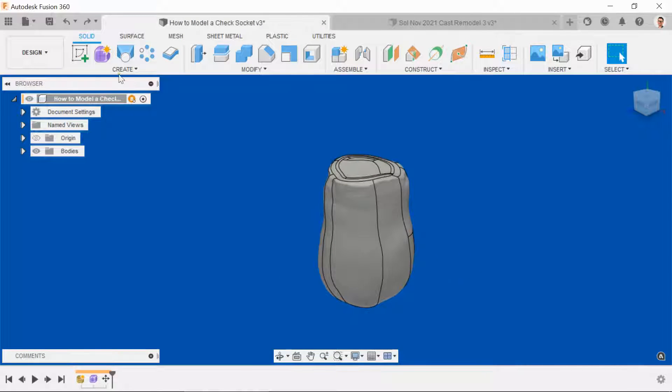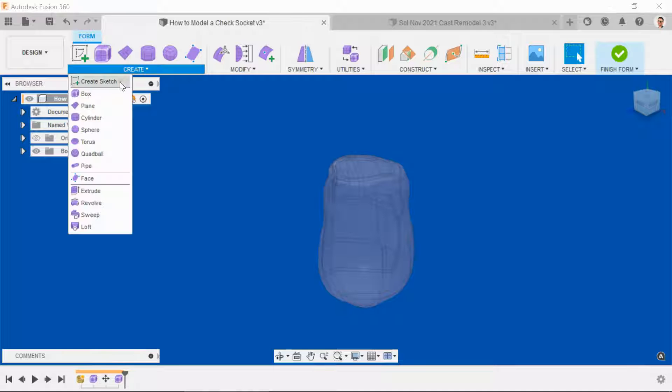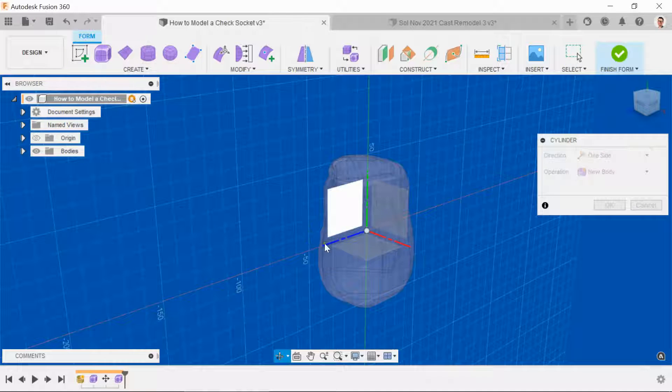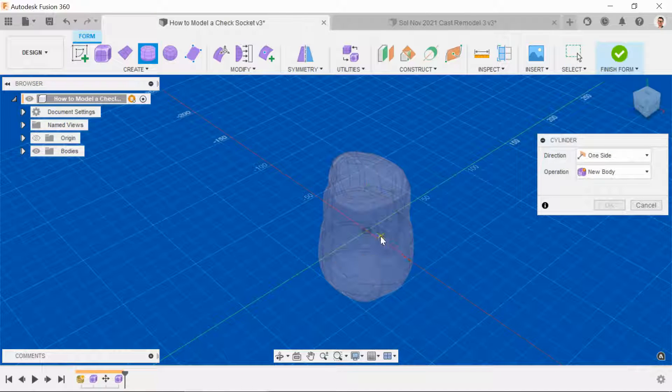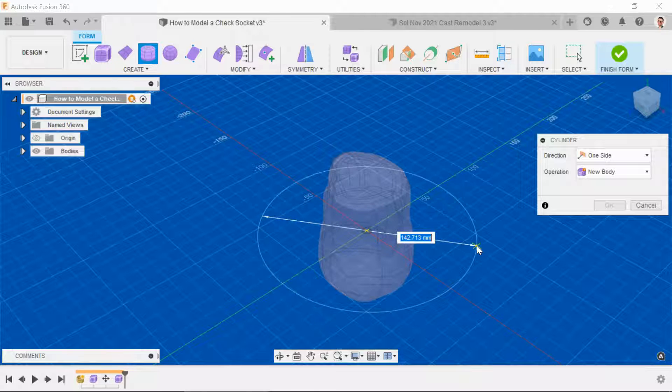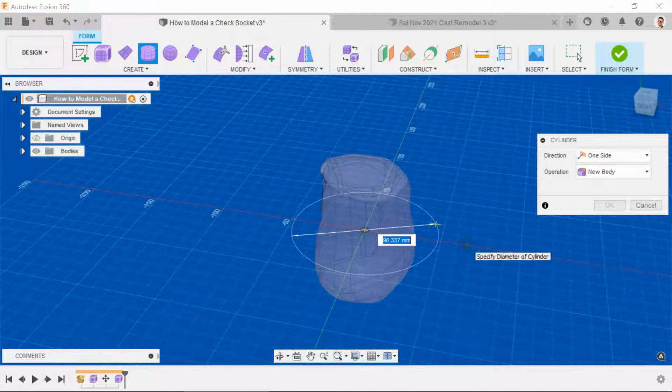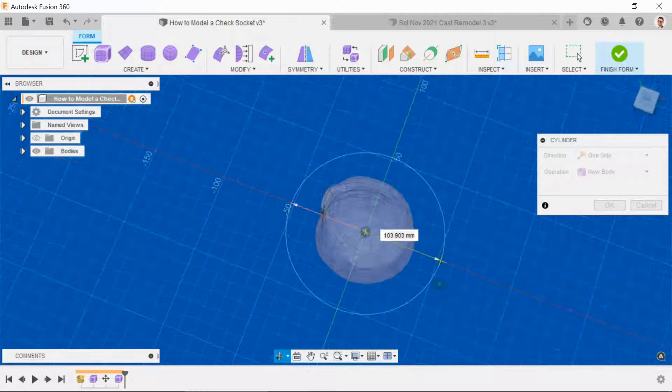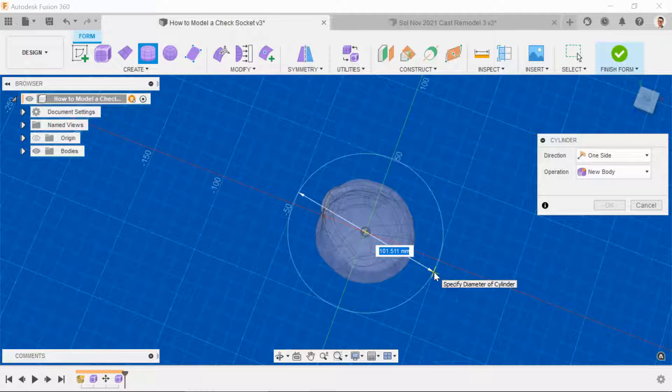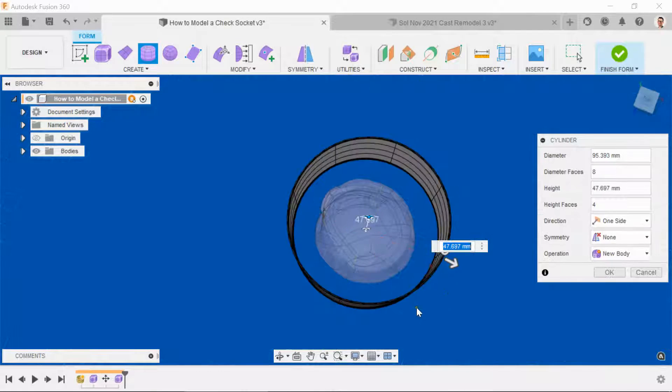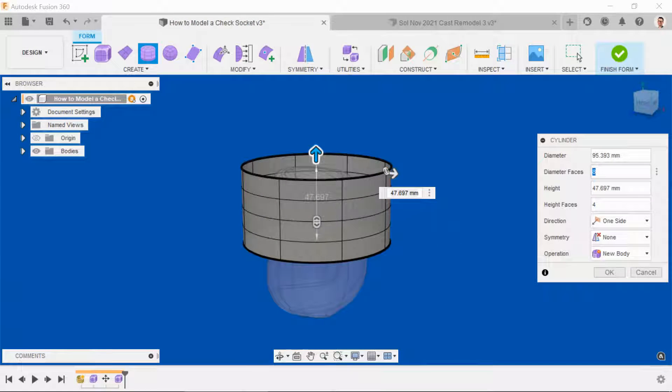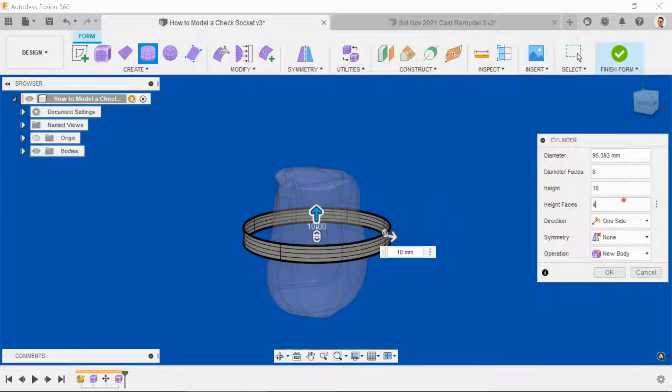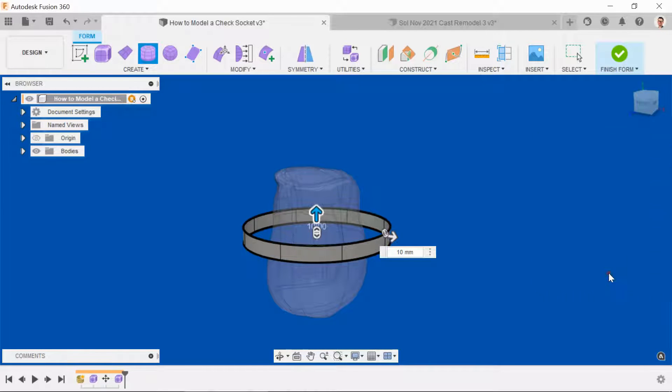Next thing we need to do is head into the create form space, select a cylinder, place the cylinder on the XZ plane, center it on the origin, and just make sure that the sides extend past the outside of the body. It doesn't really matter too much how far you go, but just keep it quite tight. I like to work with eight faces, the height of 10 millimeters, and only a single row. Click OK.